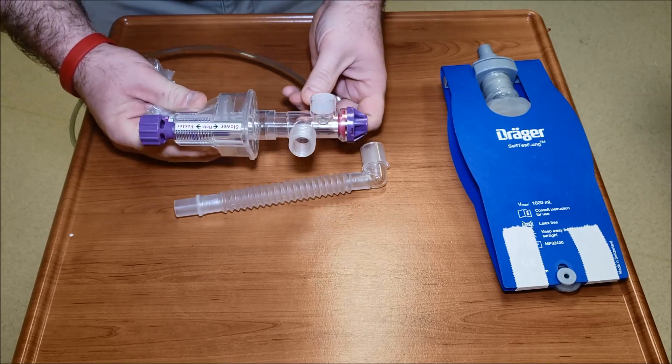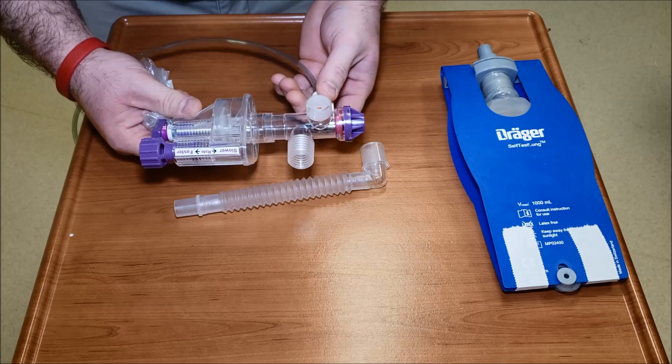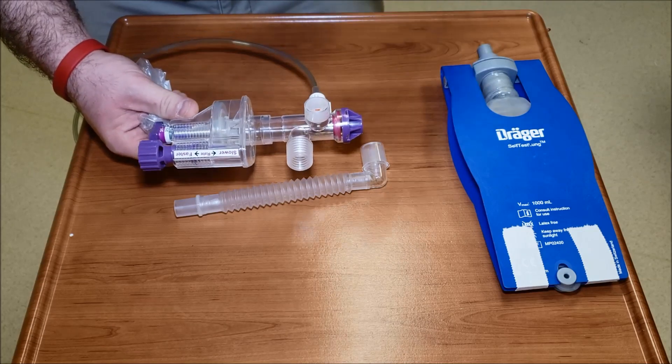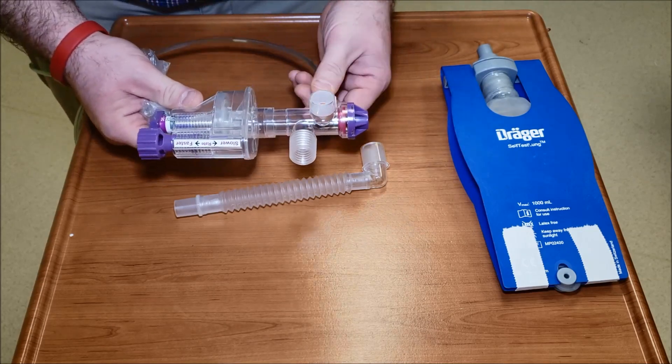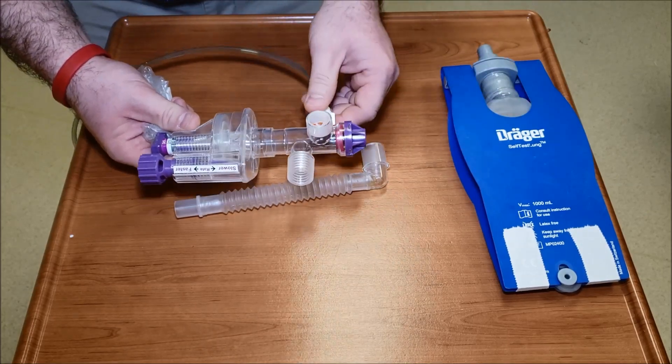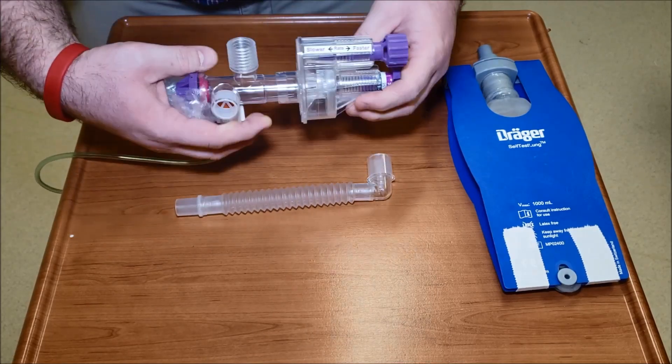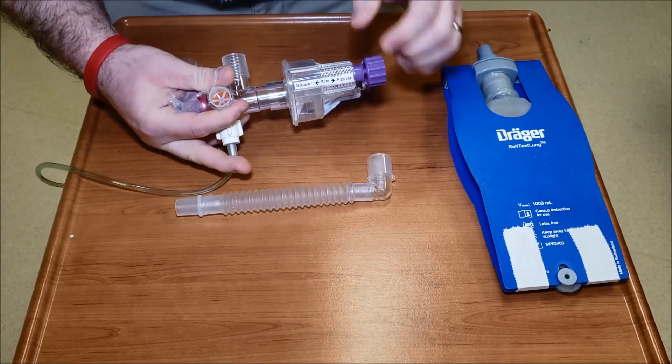These are merely purchased just for disasters, so this one will only do 100% oxygen. You may see some with the green adapter that will do 50%. If you take the green adapter off it will do 100%.